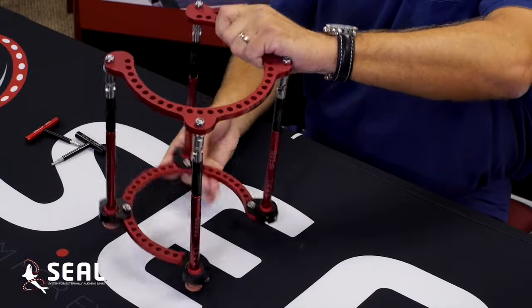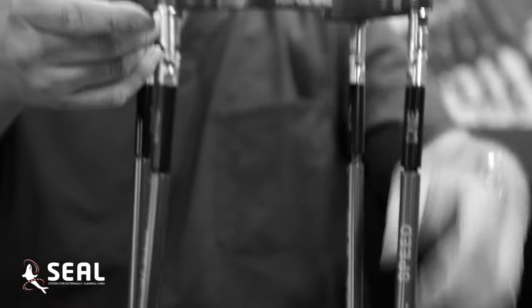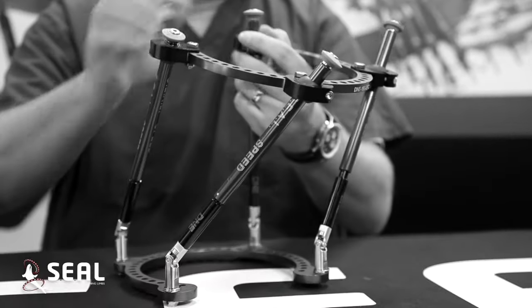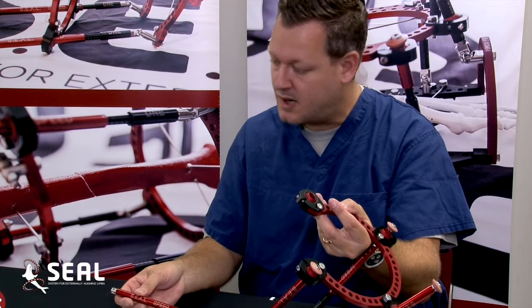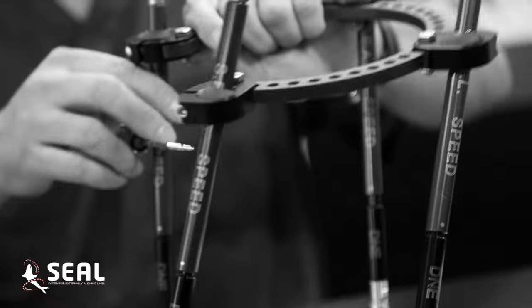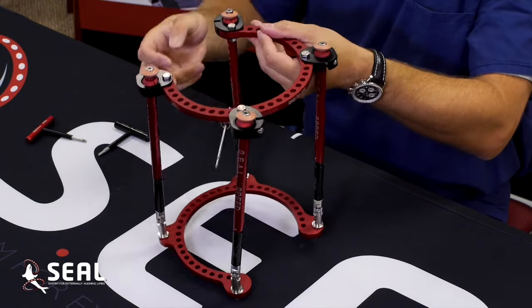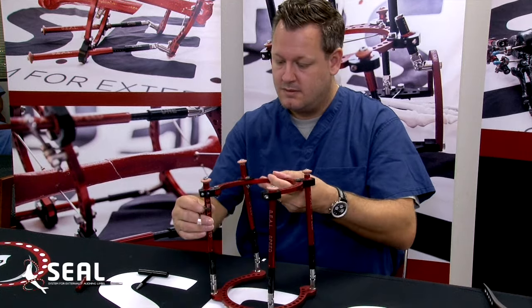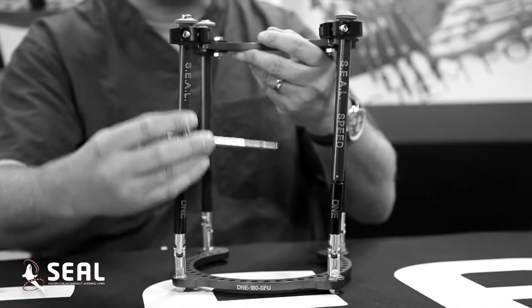The frame can be put on this way, that way, backwards, and forwards. Another nice component about the frame is you can intraoperatively and very quickly pop off the bottom stoppers, remove the frame completely or any of its existing parts, and add on any other apparatus you may like. For example, you can add on a very simple and quick pin clamp to the frame. Simply place on the clamp, reattach your universal and dynamic strut, place back on your rubber stopper, and you're good to go. This clamp, now holding your pin, can universally correct a multitude of different types of patho-anatomy and angular and static correction.